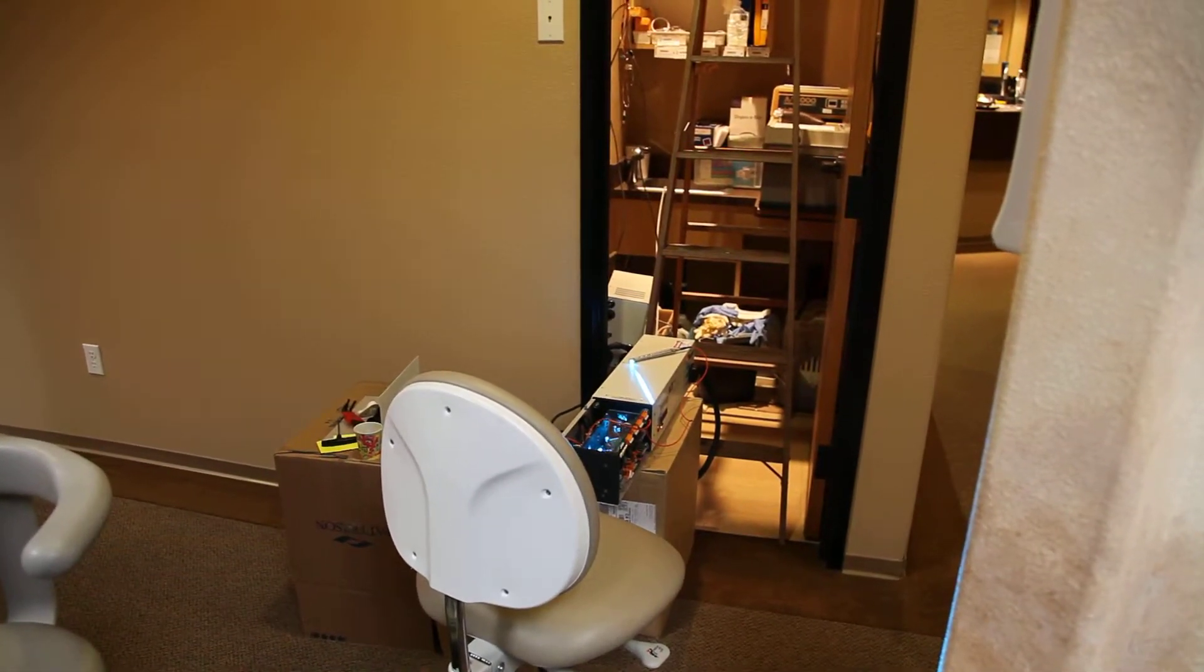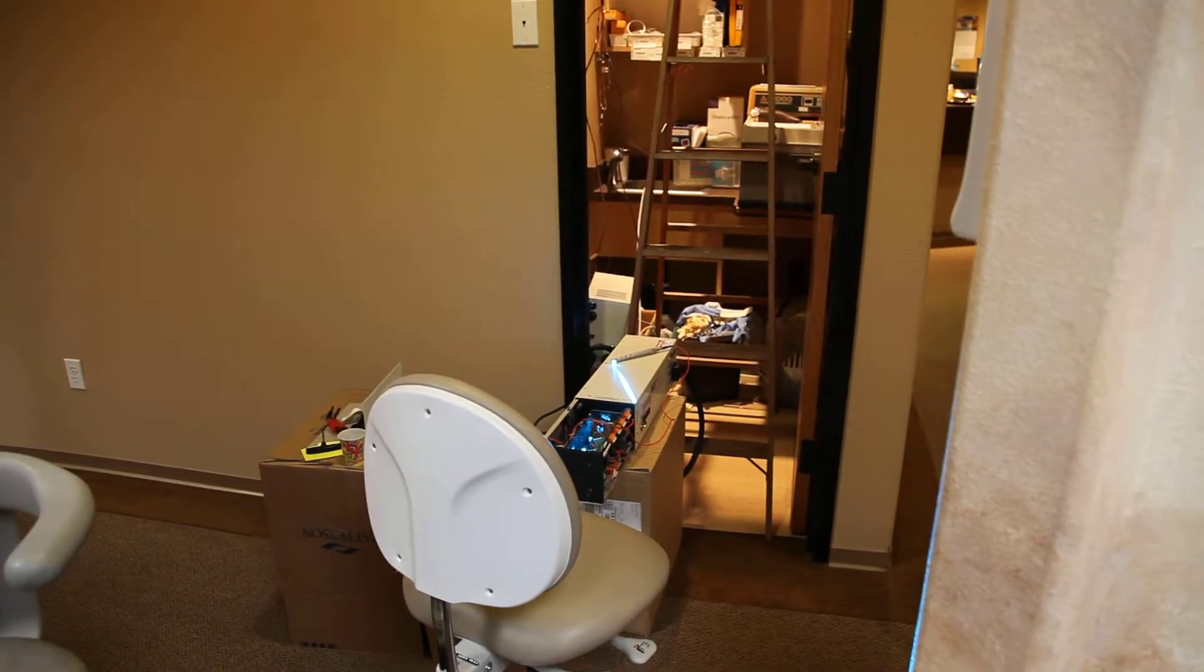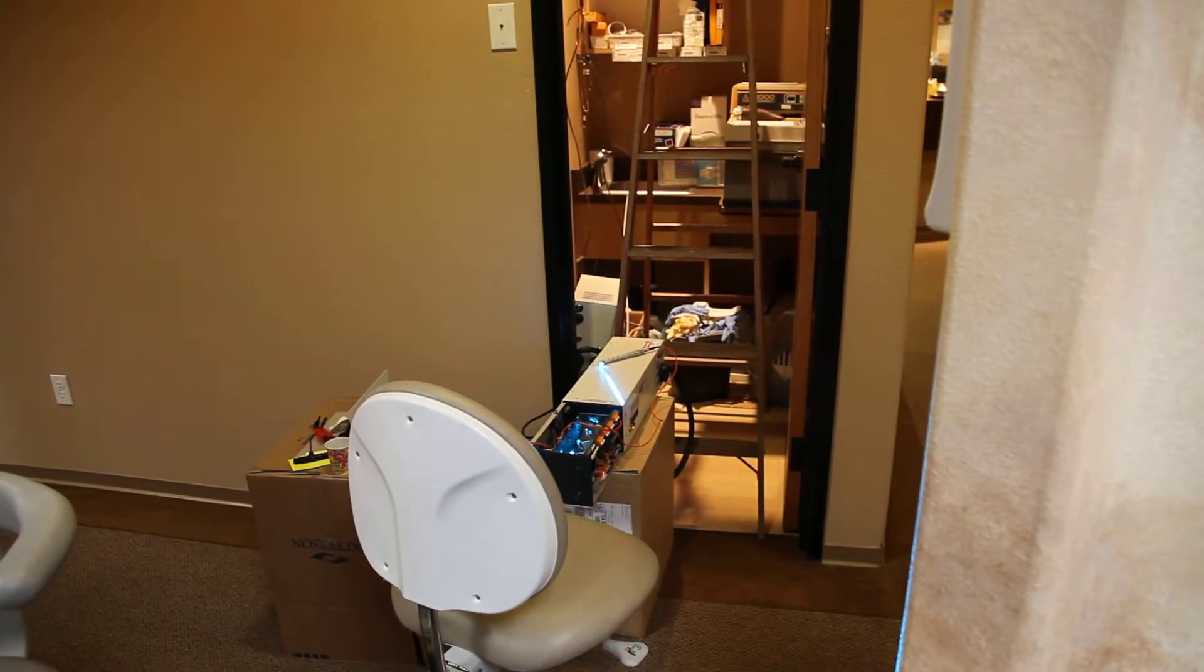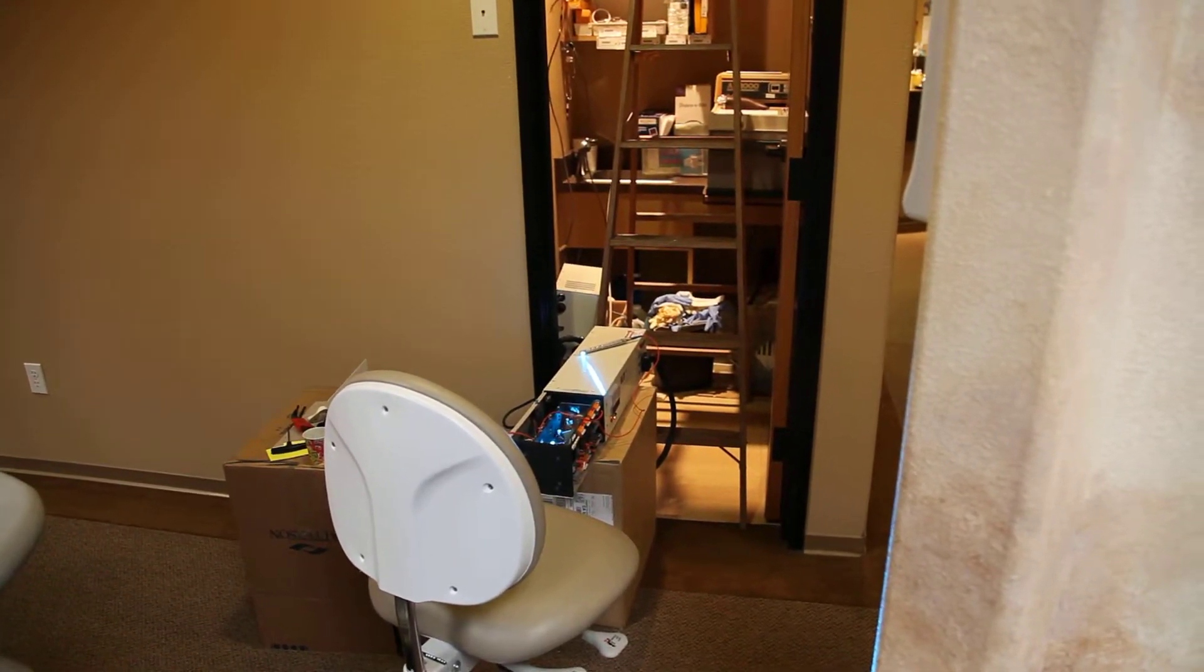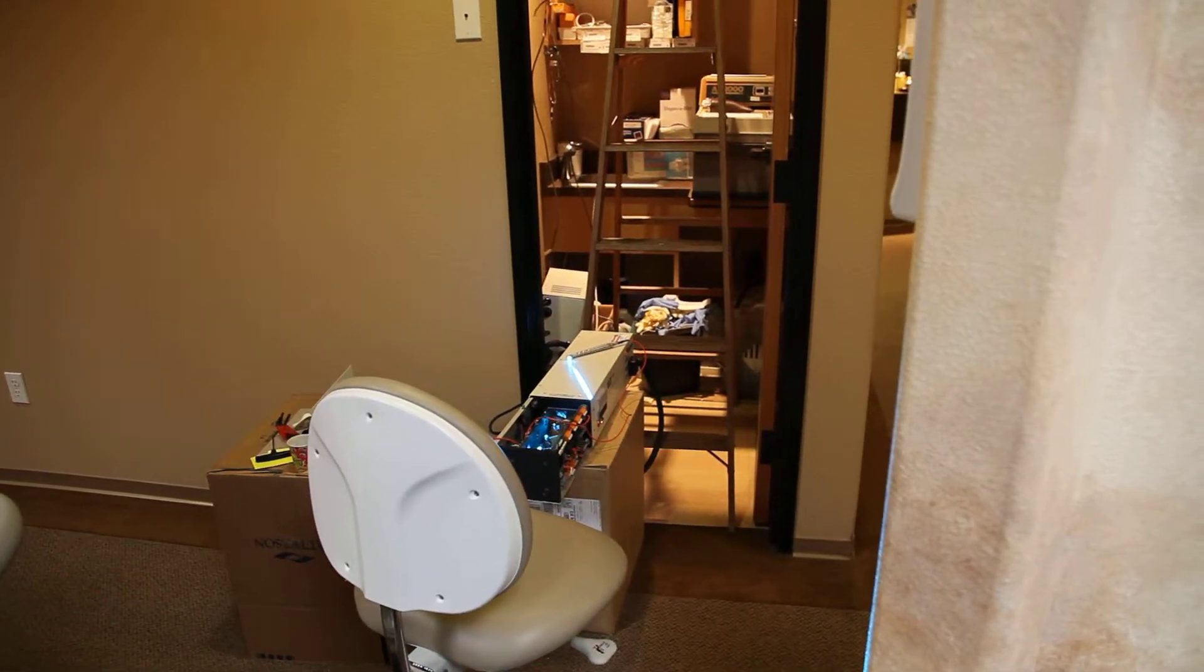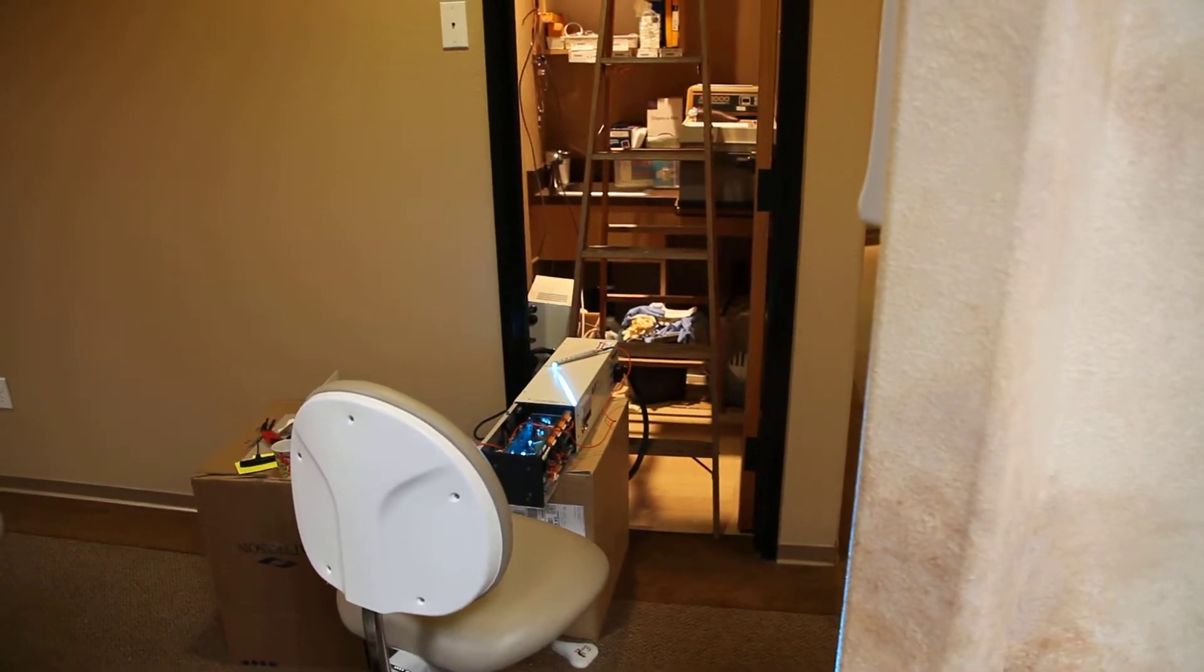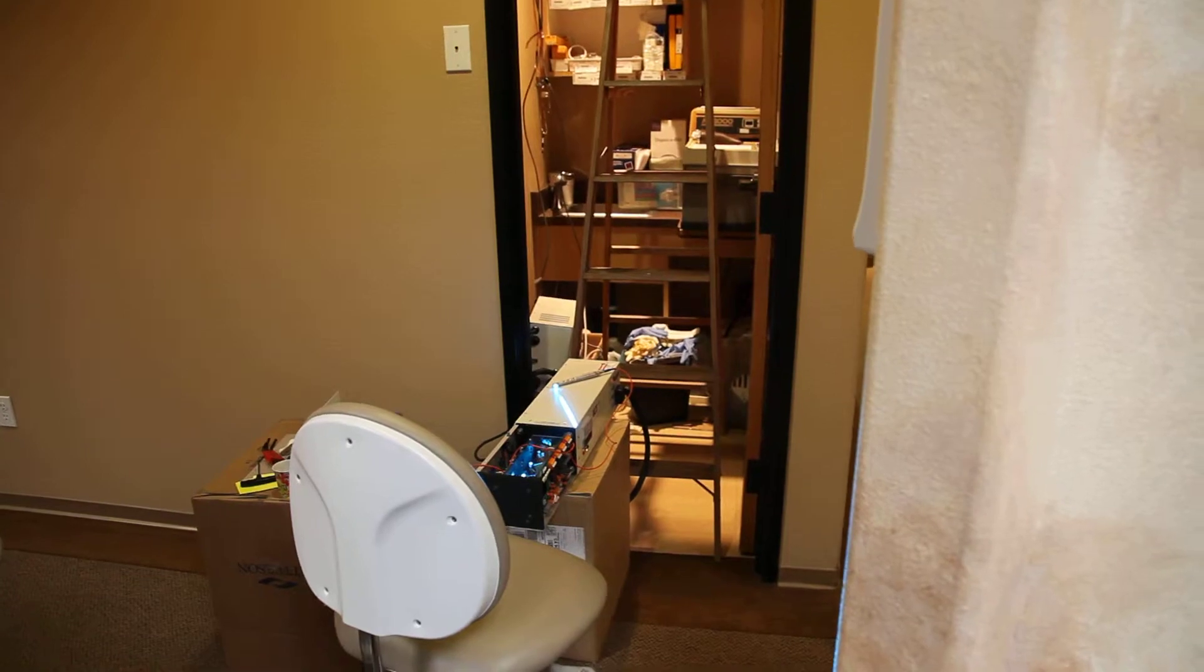Okay, short video clip to show the laser upgrade I've been working on this weekend at the dentist's office in Fremont, California.